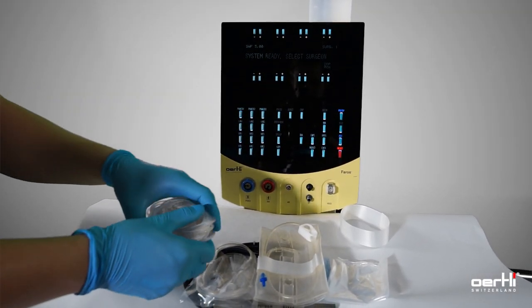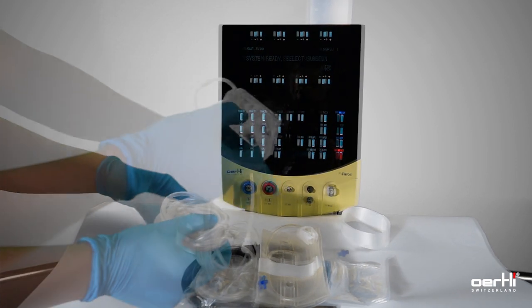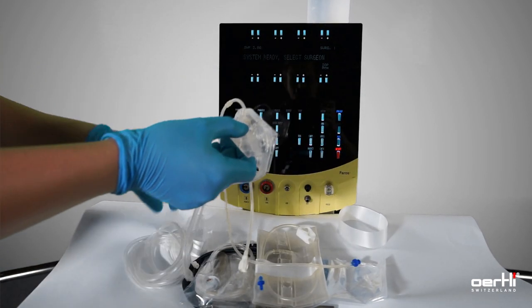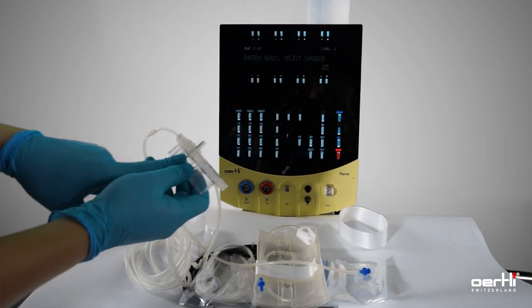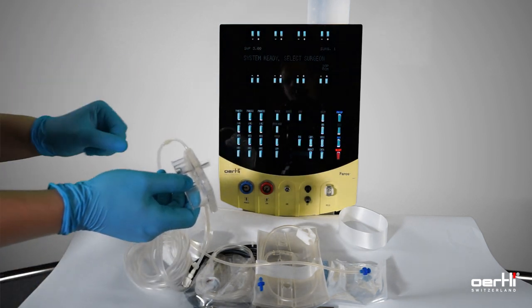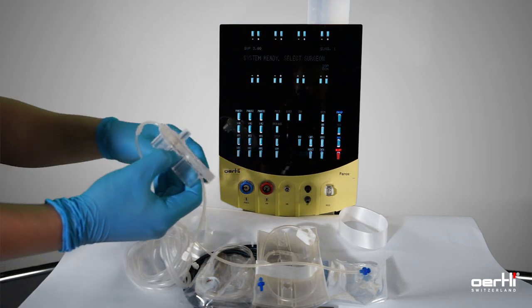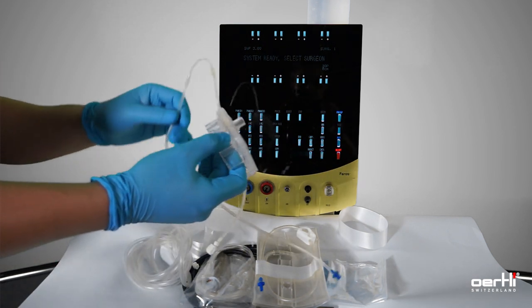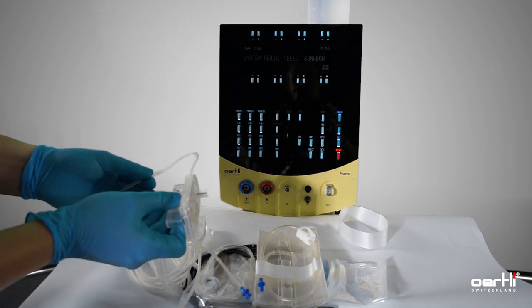Go ahead with the cassette and remove the wrap. Now you have two options: either you hand over the cassette to your jumper and ask him to install the cassette system, or you can do it by yourself by following a couple of rules to prevent losing your sterile condition.